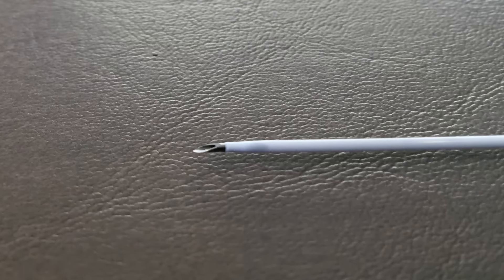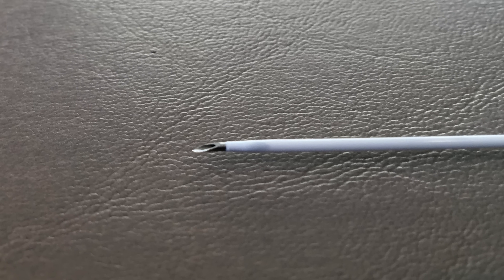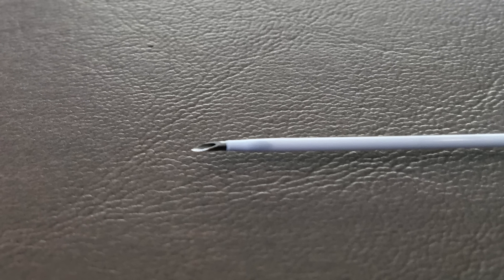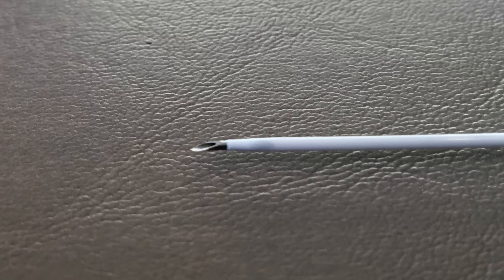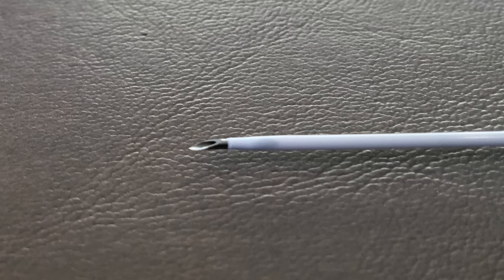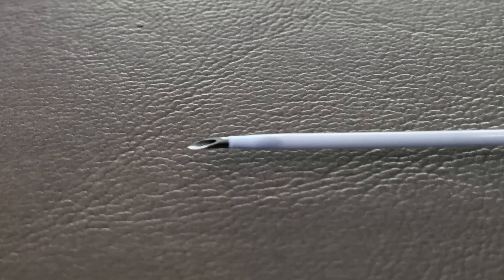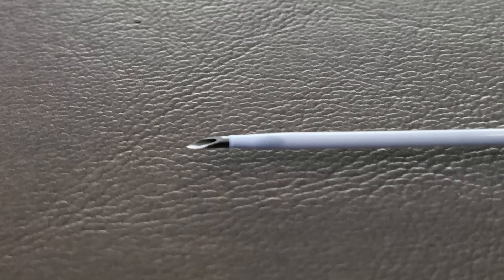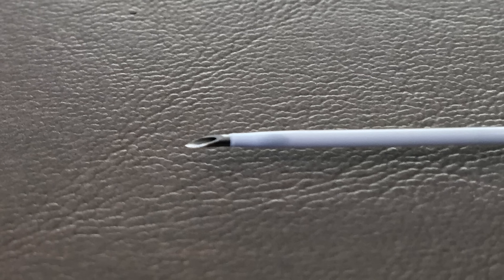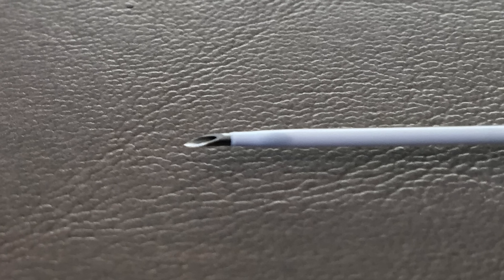Here is a picture of a typical IV catheter needle unit. When one places an IV catheter, one must manage to insert both the needle and the plastic catheter into the vein before sliding the catheter portion over the needle shaft. Note that the needle is significantly longer than the plastic catheter — herein lies the great challenge. One must insert both the needle tip and the plastic catheter a good 3 to 5 millimeters into the vein without rupturing the back wall.